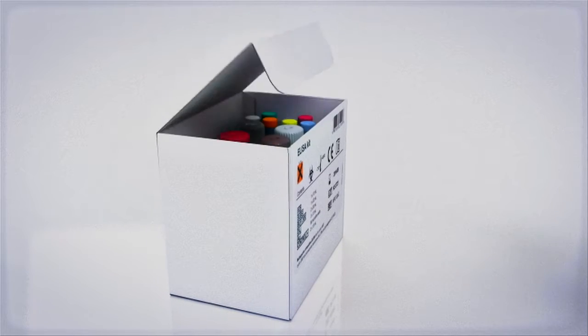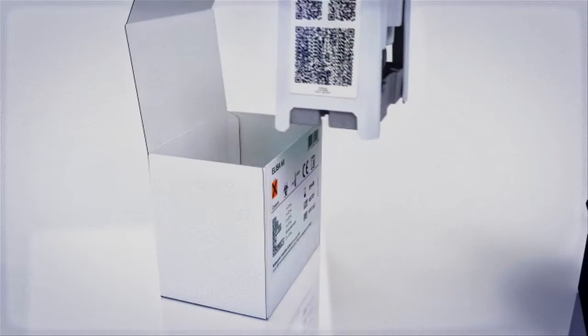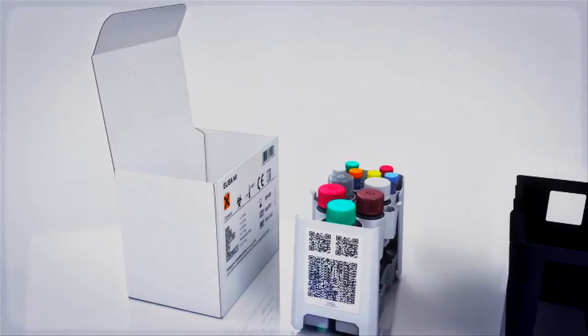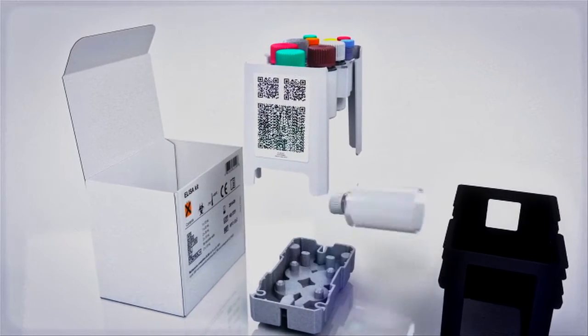Agility features pre-packaged reagents in smart kits for convenient loading. Simply place the pre-loaded package directly into the instrument.